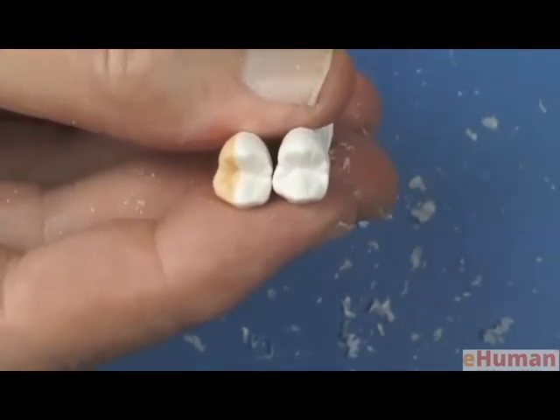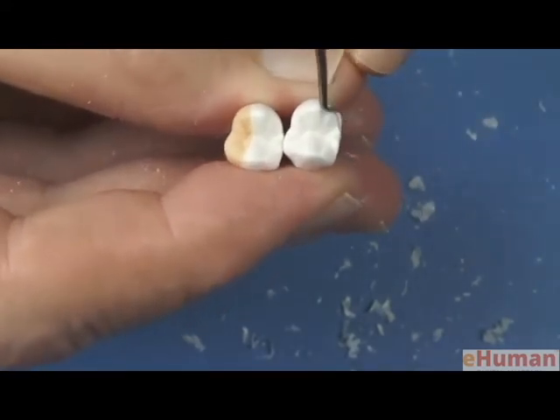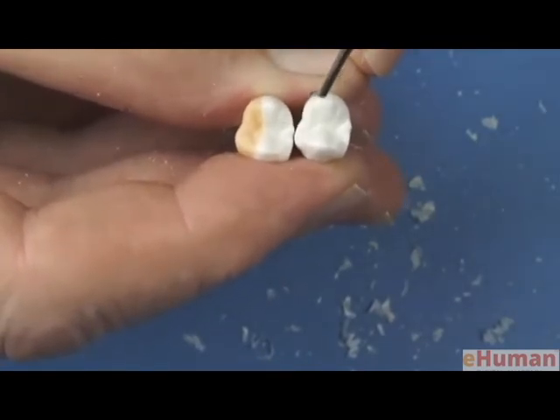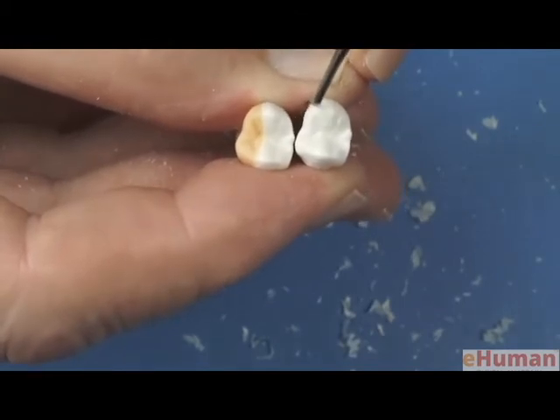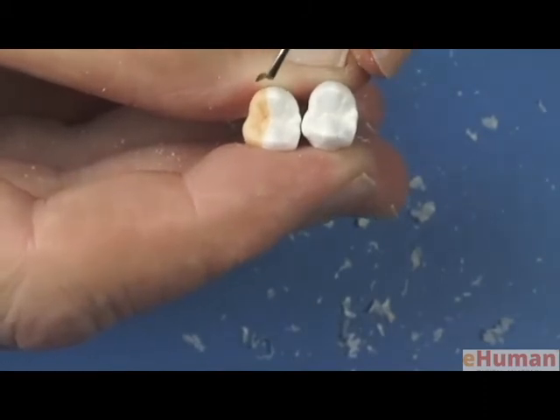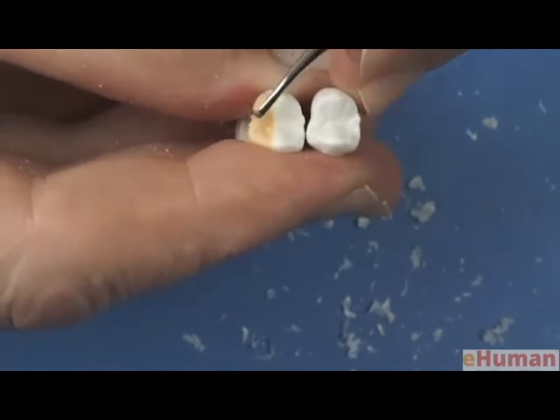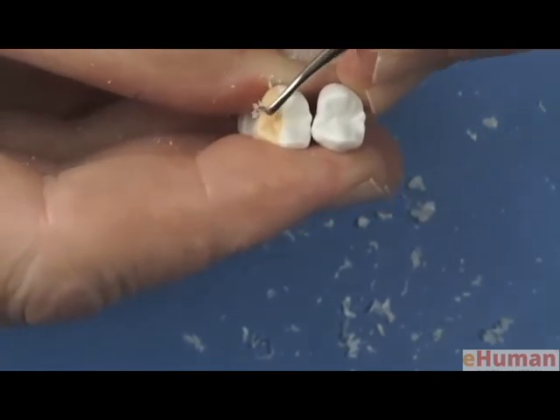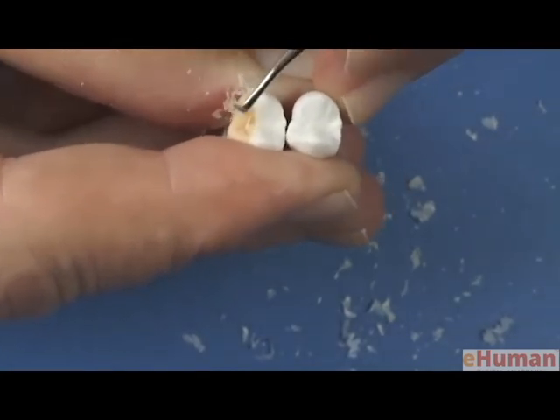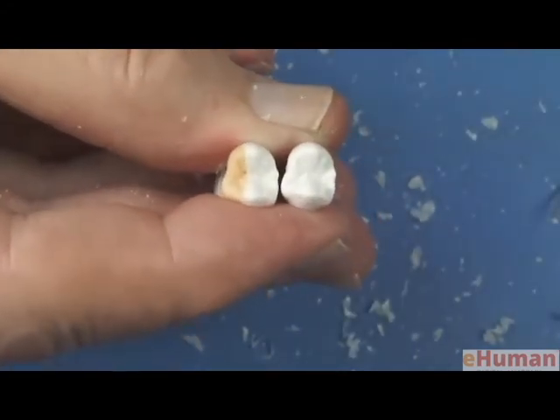What do we see that's different between the two? I notice that this tooth has a continual curvature here and a curvature on this surface that's kind of a continuous convexity, lingual to the mesial marginal developmental groove. And mine looks a little bit more prominent. It's a little more bulbous than the intact tooth. So I'm going to just carve while I'm looking at the two. And I'll keep checking that until we get rid of that extra bulbous nature there.